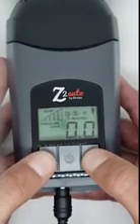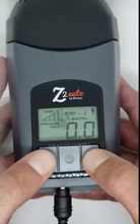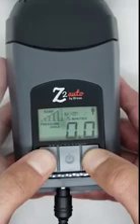Once you unplug the device, the unit will automatically lock and will be ready to be given to the patient. That is how you change the clinical and patient comfort settings on a Z1 or Z2 device.